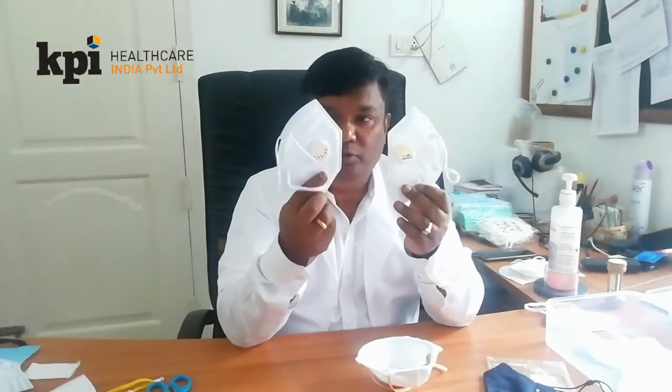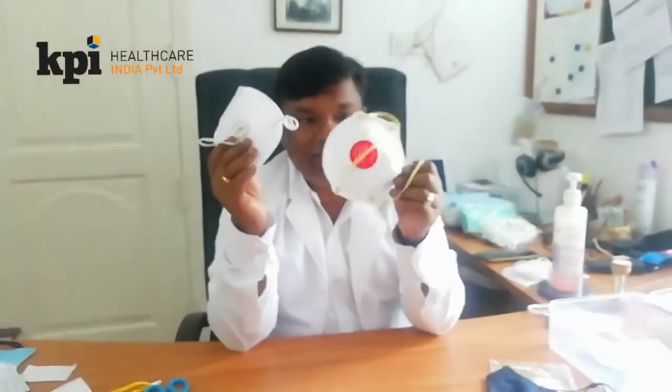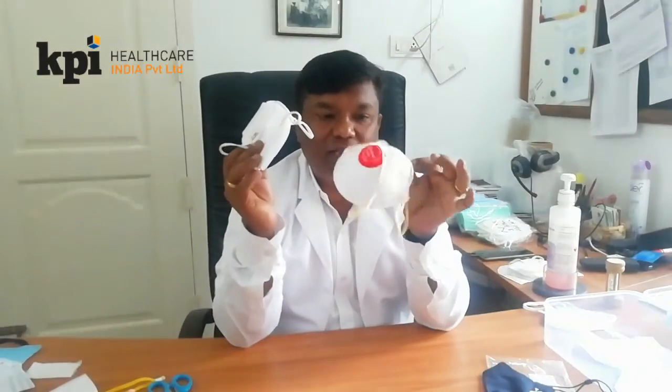You are not eligible to use this during COVID. But when you use this, these are the branded ones — you have to be very careful. Whenever you use the valve, see to it that the valve gets open. Thank you very much.